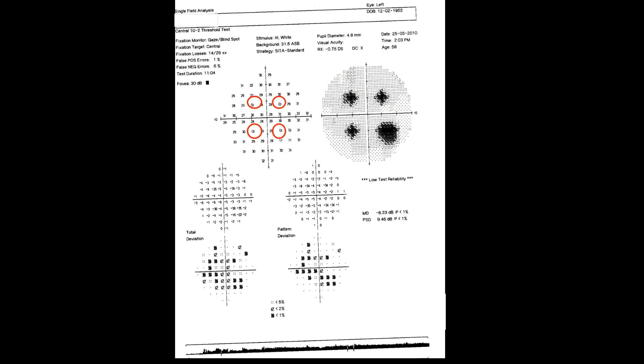In this visual field, the patient did not respond to the stimuli presented at the four primary points but subsequently responded to surrounding point stimuli, resulting in the four dot artifact on grayscale which is the reverse of what is seen in cloverleaf pattern.